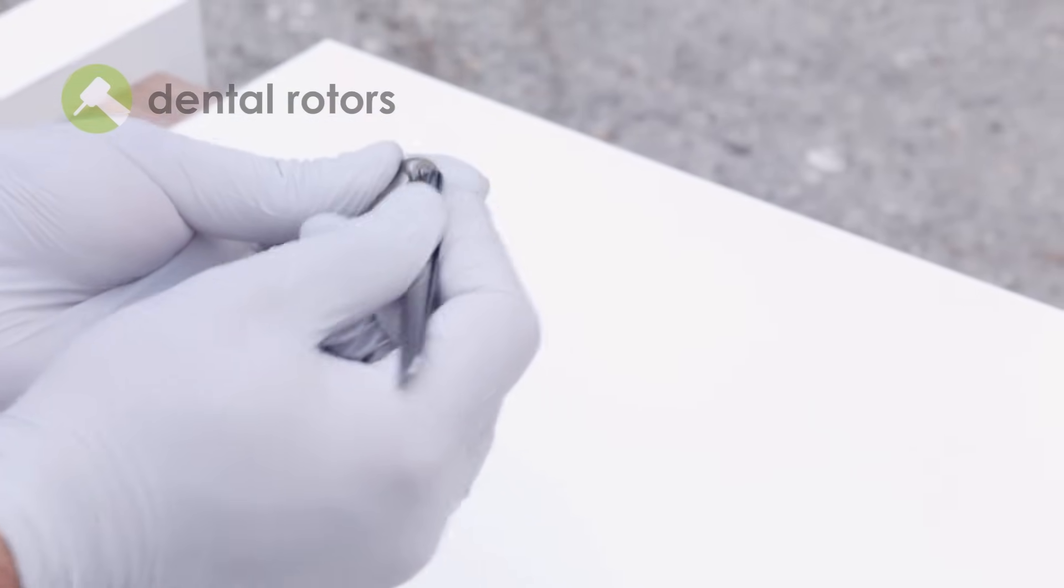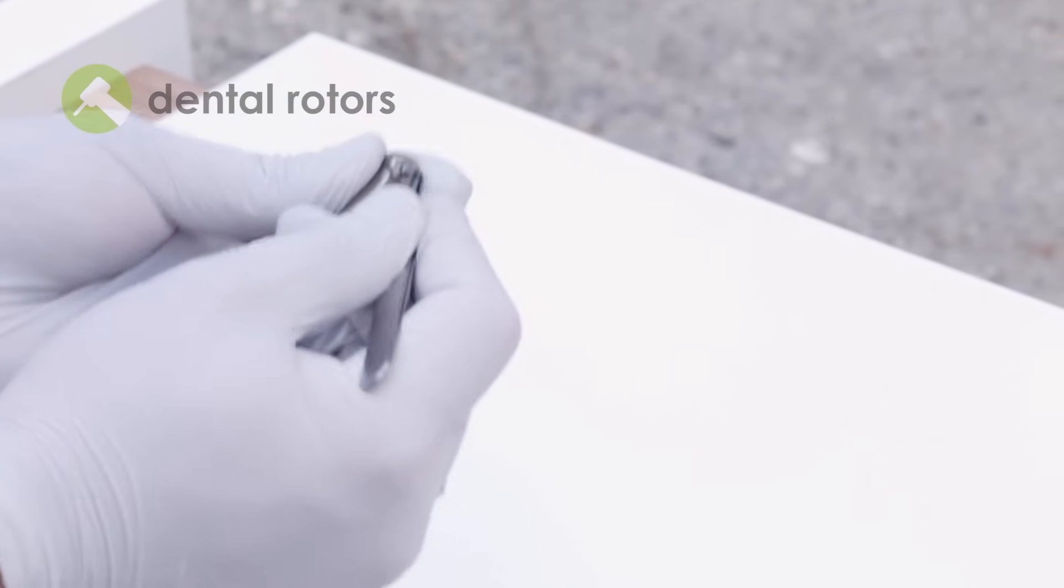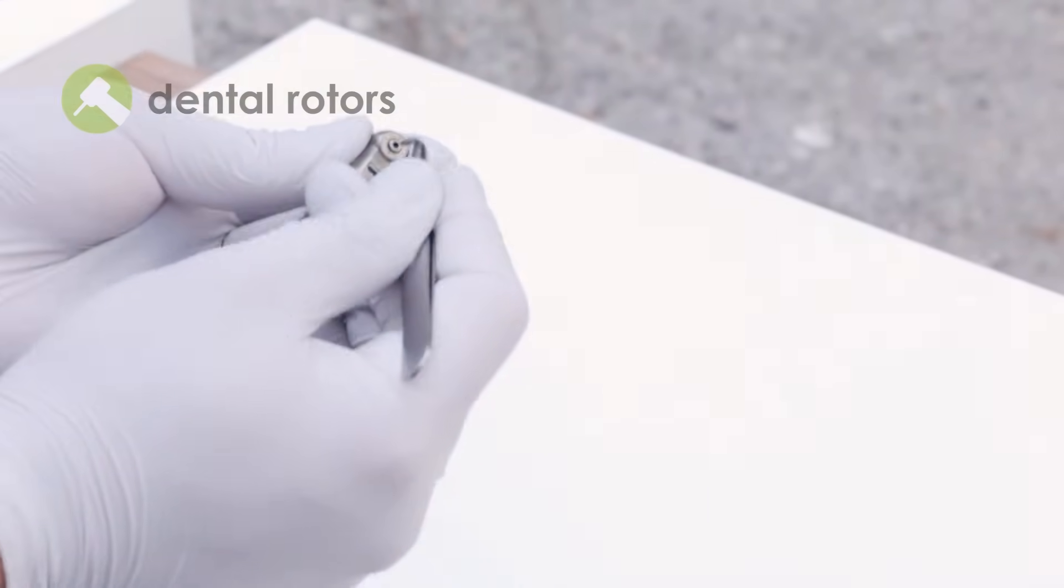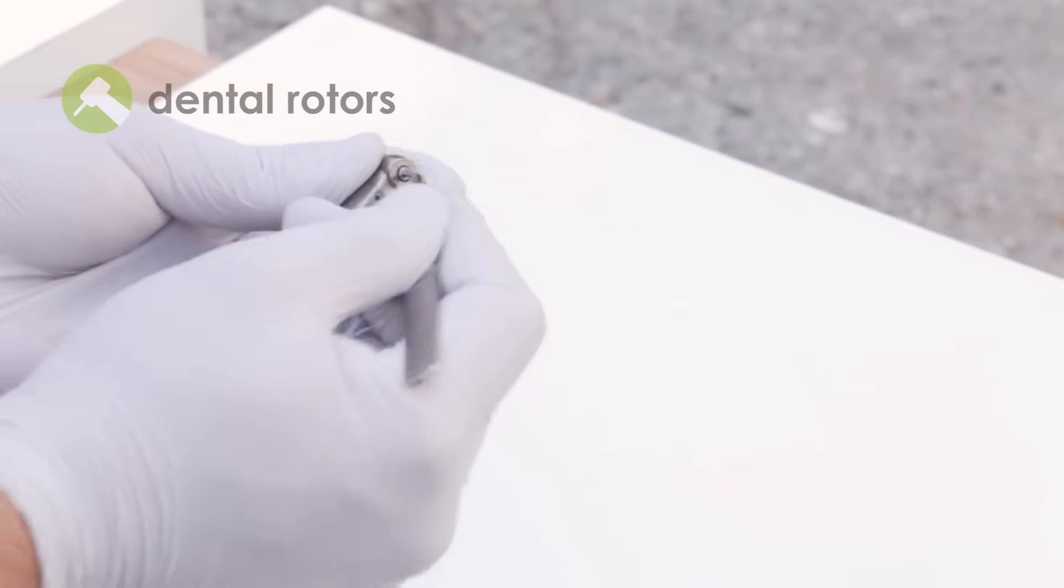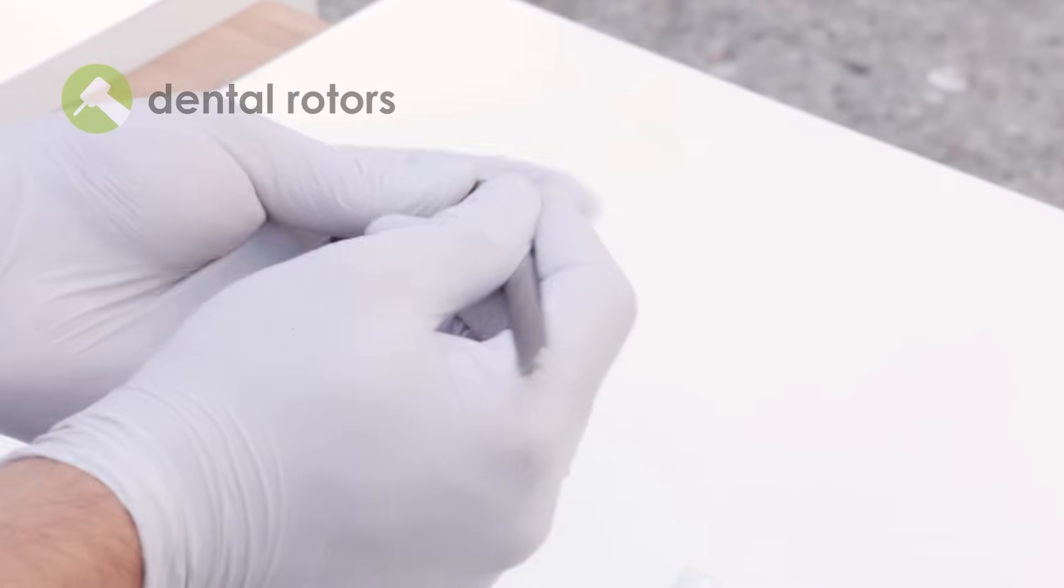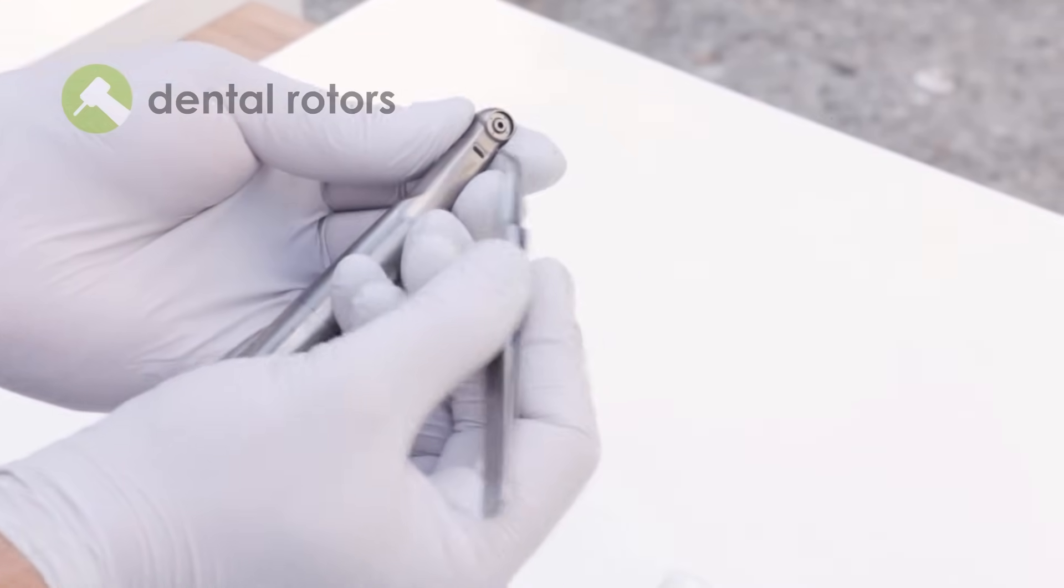Carefully extract the entire cartridge as shown in the video. Sometimes, the lower part of the cartridge may remain stuck inside the head. In this case, you may need to push it gently but firmly to remove it completely.